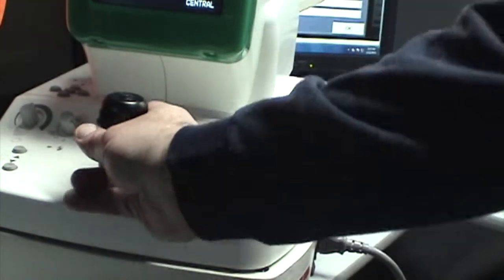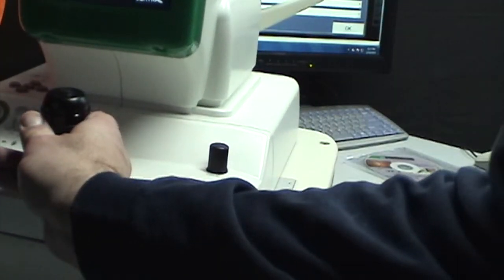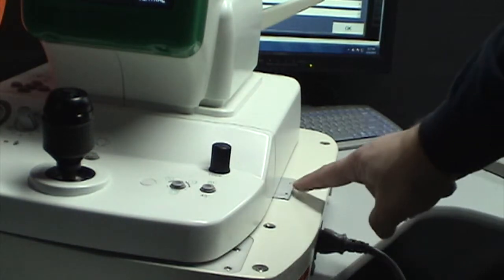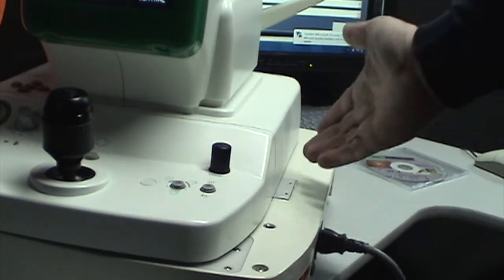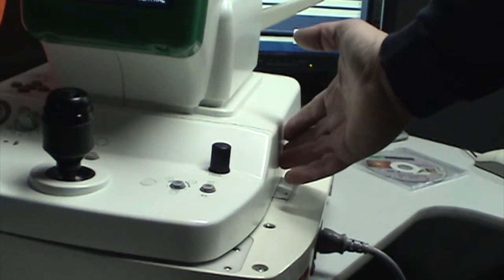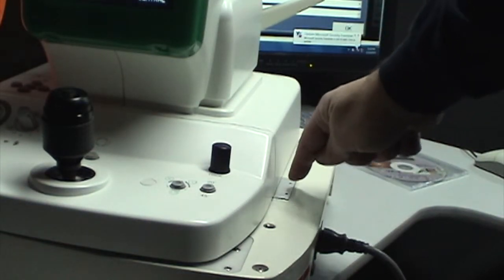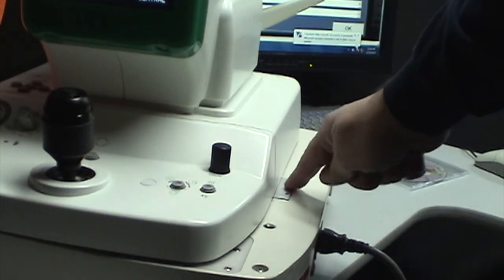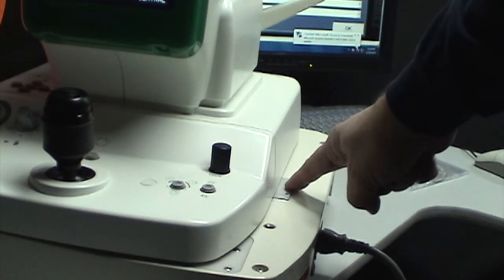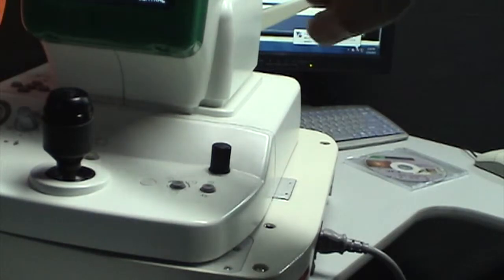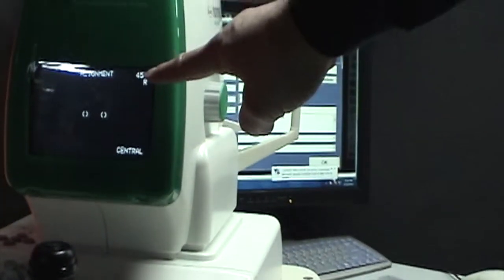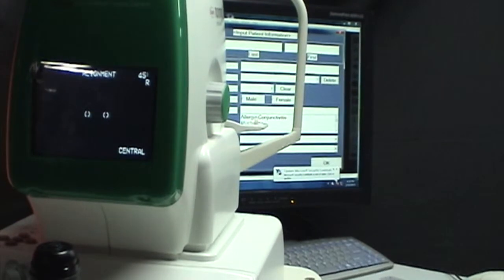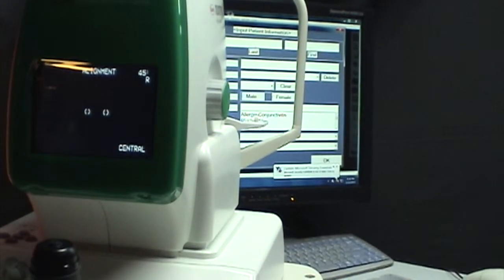If you grab the camera by the joystick and push it all the way to the left, you begin to expose a metal plate right here on the top of the power supply. There's a sensor in the upper moving portion of the camera. It's an optical sensor that's looking down at this plate for a reflection. When it doesn't see the reflection, this right-left indicator on the screen doesn't change, and it puts the fixation target in the wrong position.